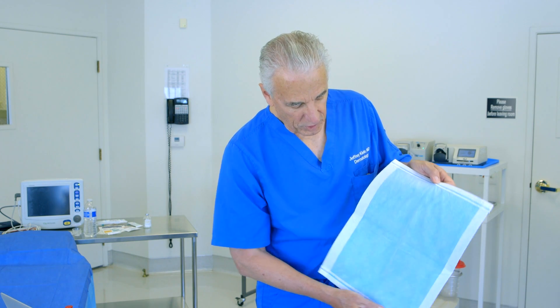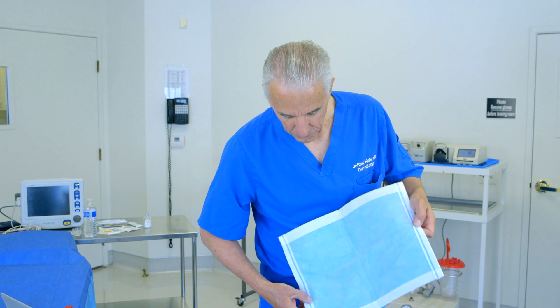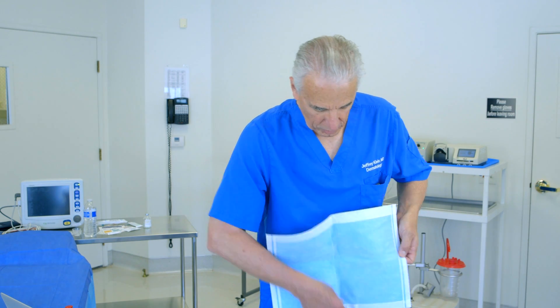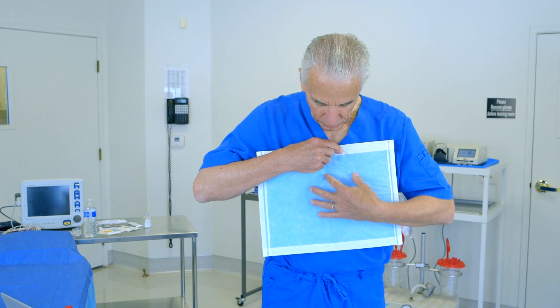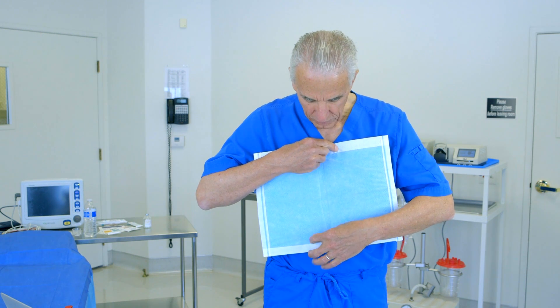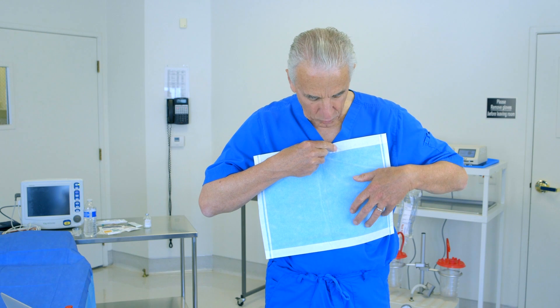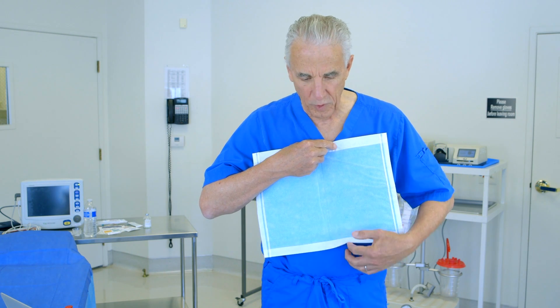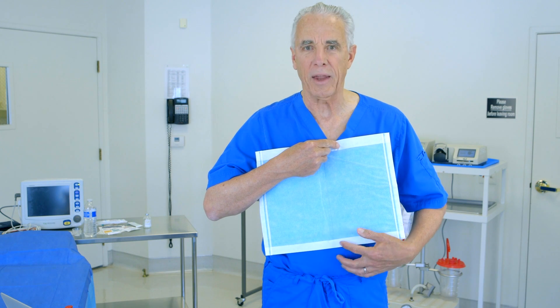When it reaches the margin, it will go along the trough — for example here. The fluid will trickle down here, and when it hits this little trough it percolates laterally and gets absorbed back into the pad itself.